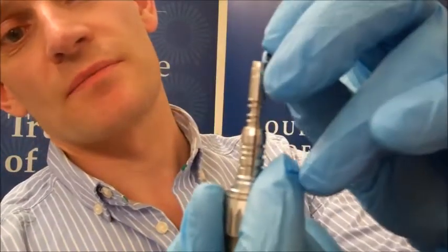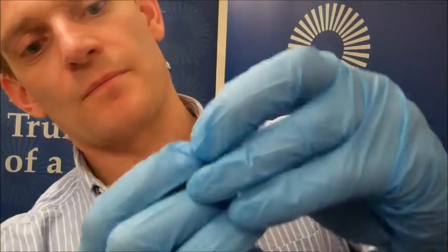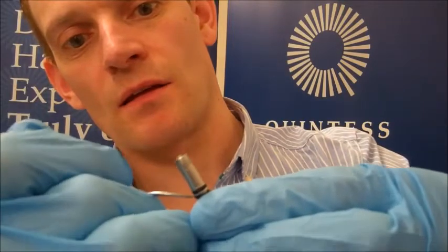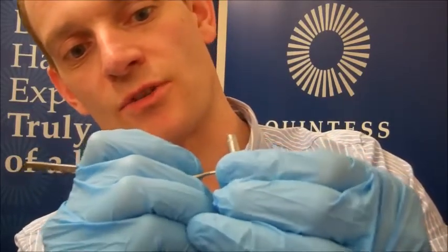To put them back on, start with the smaller O-rings. Apply them — you need to stretch these a little bit, and they can go flying out of your hand so be very careful. Just roll them down where they need to go, starting with the top one. You can see I haven't covered the drive air hole. Apply the second one — that will drop into where the drive air hole is — so just use your little pick and stretch it out gently, then roll it into that next groove down. You can see the drive air hole is still clear.